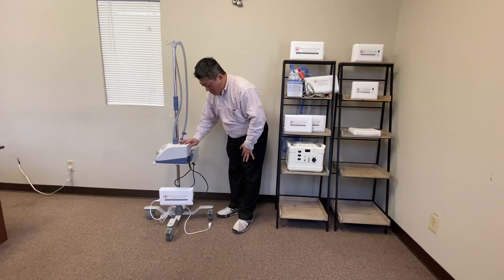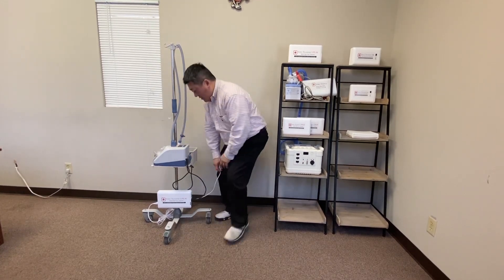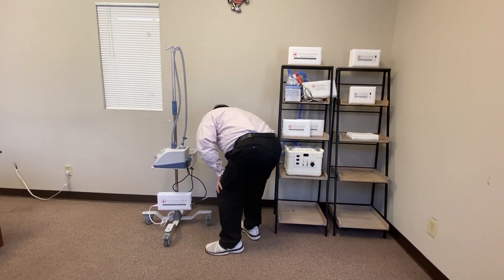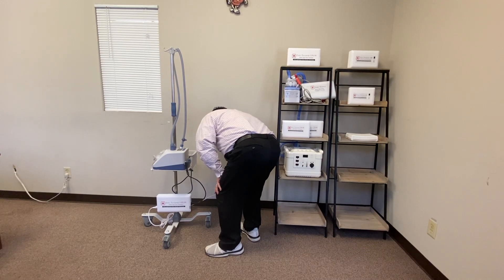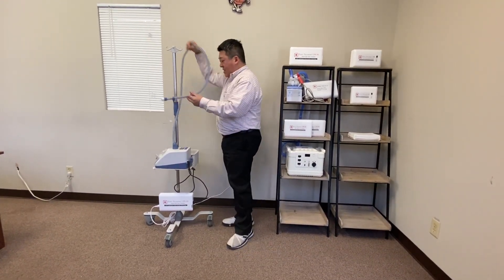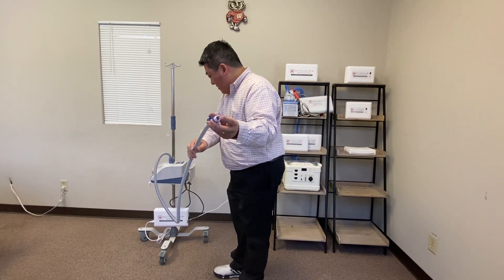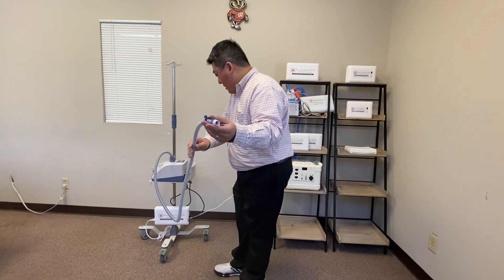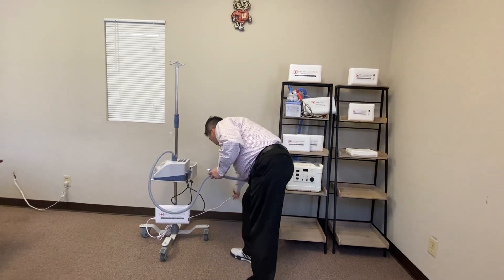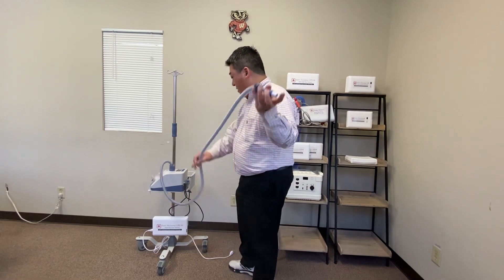It's really a game changer. Now, at the bedside before transport, you will have it plugged in and you can see that the AirVo is flowing air. When you transport, you can simply unplug and the AirVo will not lose flow. It will not reset.